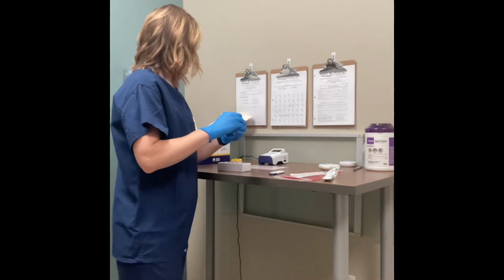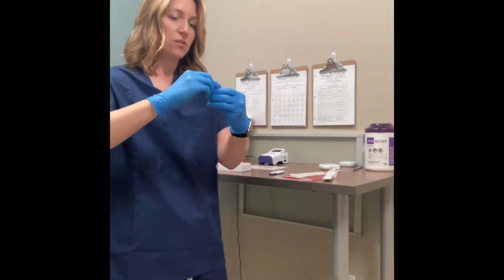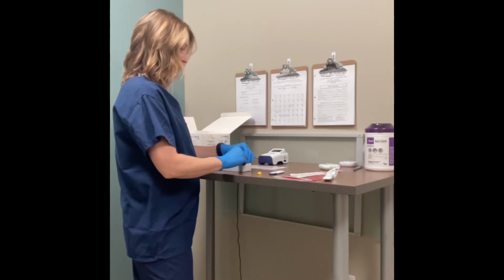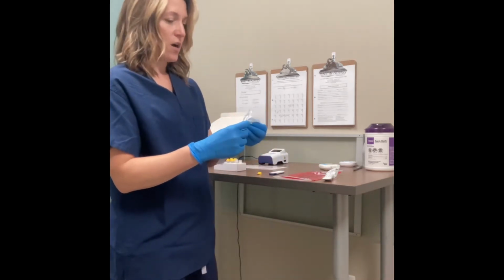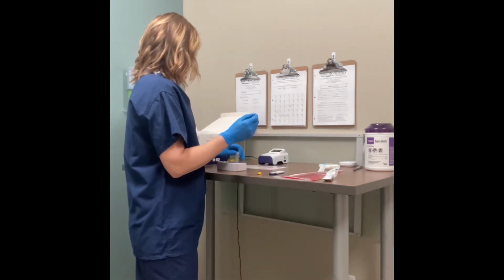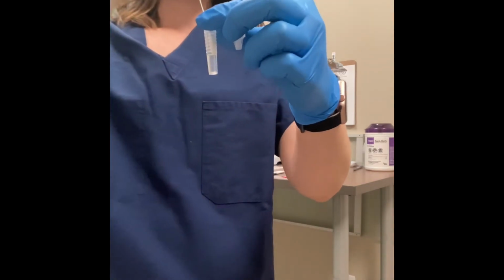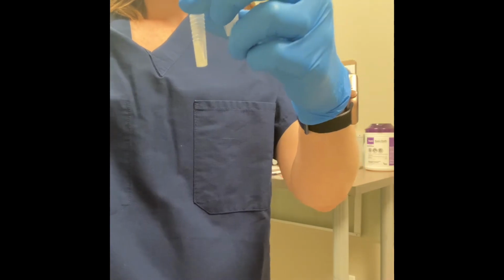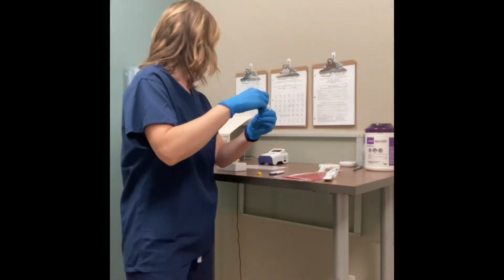So the first step is you have to remove this yellow cap. Once again, be careful. They like to splash. If you do lose any liquid, throw it away and start over. These liquids are precisely measured. So you'll get the swab. This one starts by taking the swab, insert it completely into the sample. Now this one, they want you to swirl 3 times. 1, 2, 3. That's it. There's no plunging. There's no incubation period on this one.